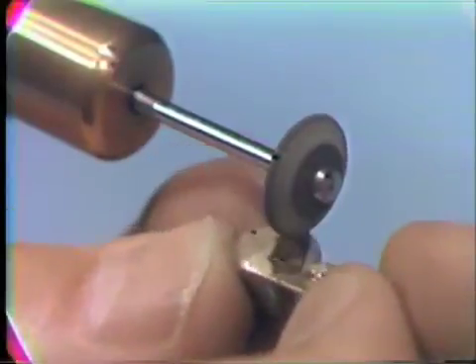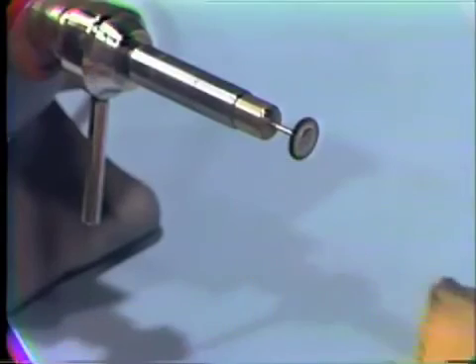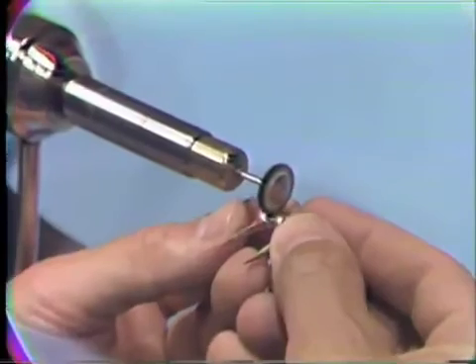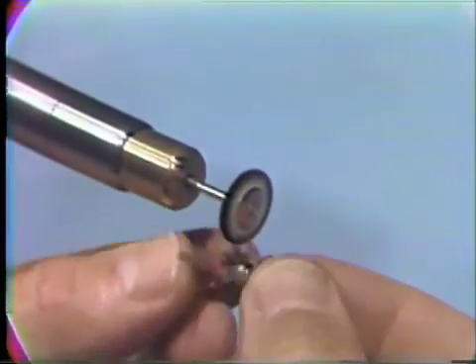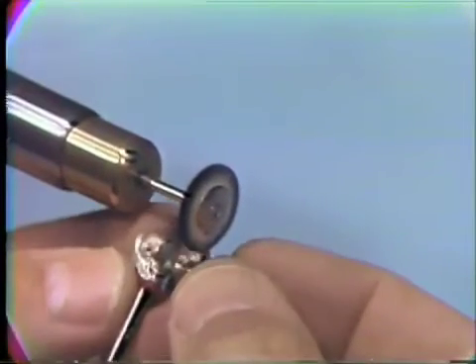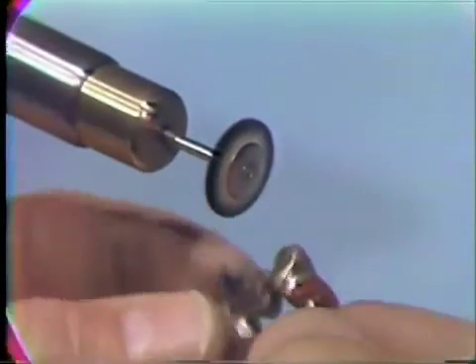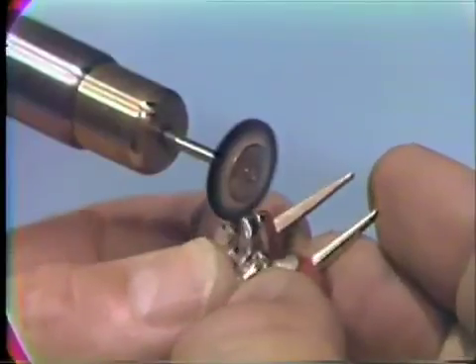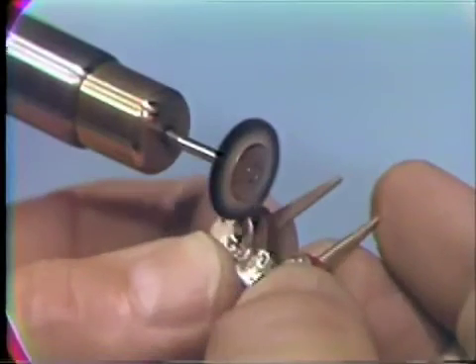All accessible margins are polished with this rubber wheel. BBC compound and a Robinson bristle brush can be used to further polish the margins, the interproximal, and the solder joint area. It's important to leave the dies in the bridge — this makes handling much easier with less risk of damaging a very fragile margin. The brush is rotated from gold to die.